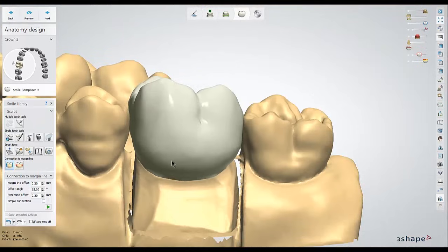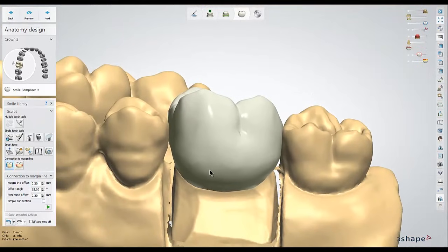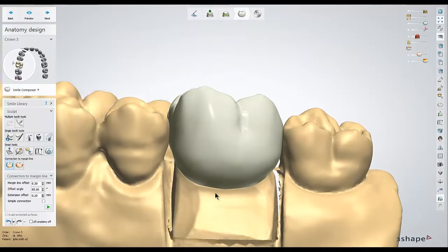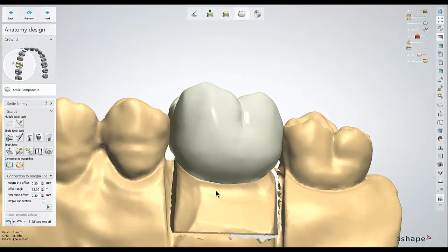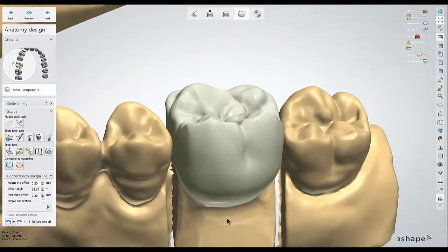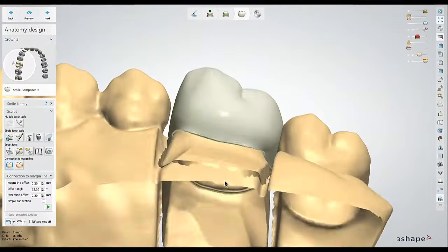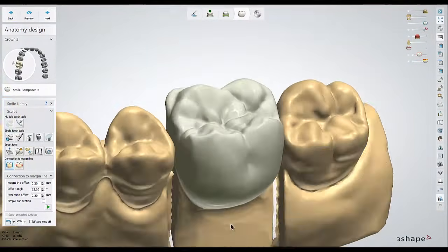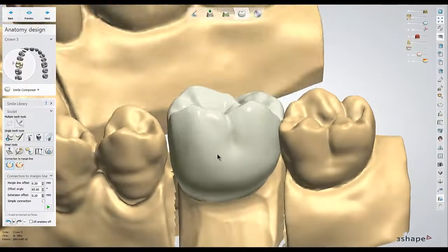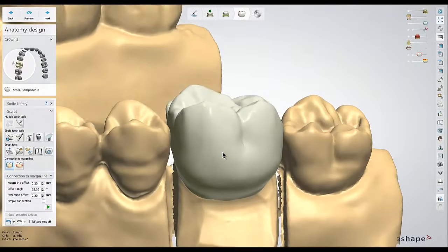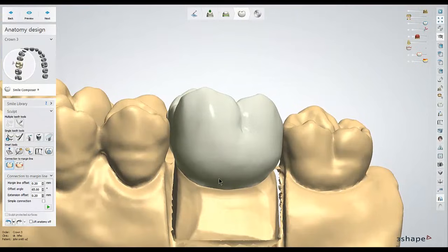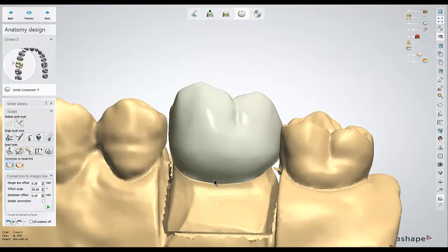Keep in mind for this crown design, we're going to be going over the workflow that I happen to find to be a fast way of designing single crowns. Any of the tools you see me using you can use in any order. The first thing I'll usually do is take a look and see where the crown has been placed — a lot of times it'll be at a slightly strange angle and connected to the margin. So the first thing I'm going to do is just hit the undo button, which should disconnect the crown from the margin.